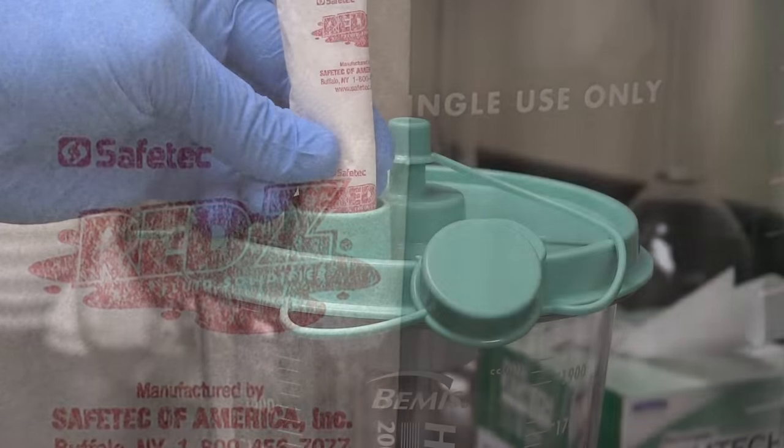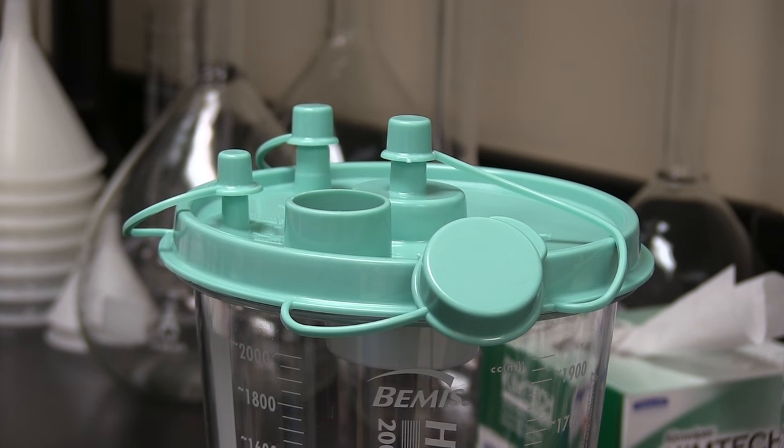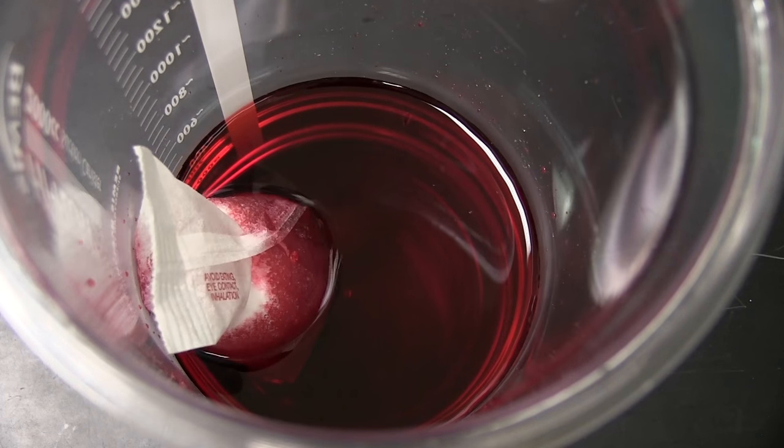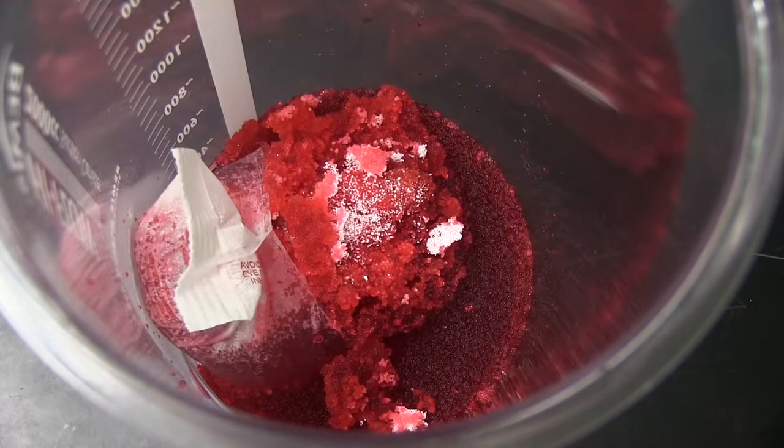For use after the fluid is collected, easily drop the pack into the porthole of the canister. The fluid will then activate the solidifier, allowing it to burst through the packaging and solidify the contents of the canister.